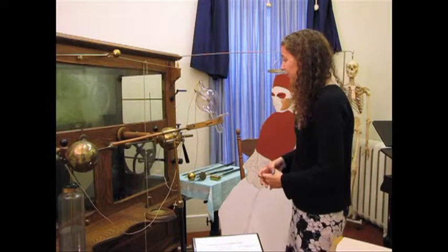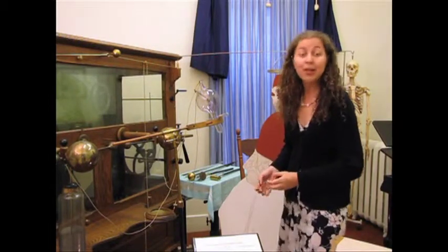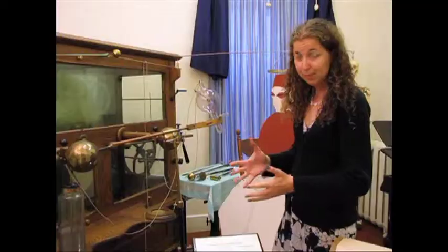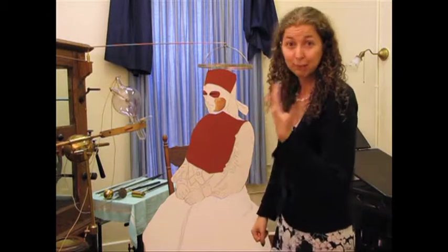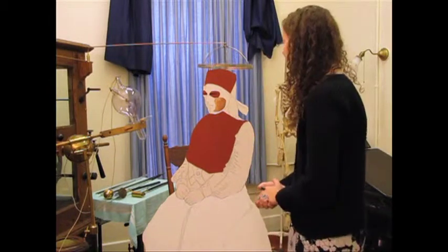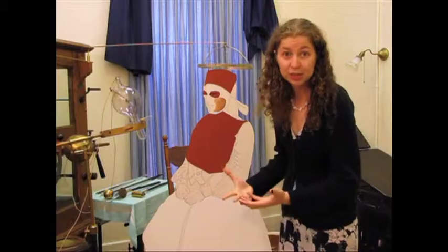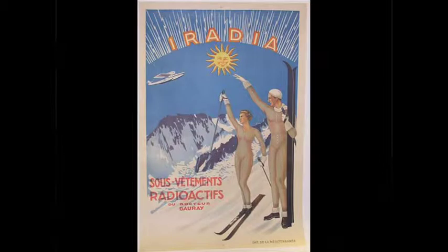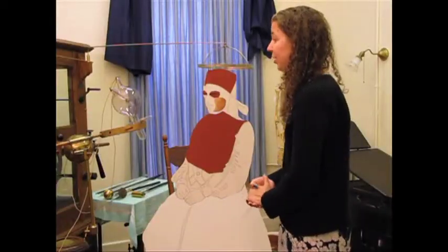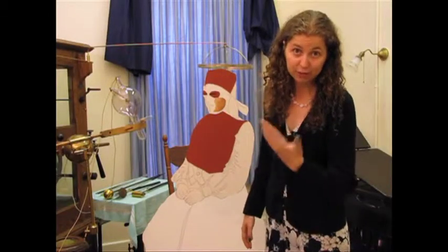But it wasn't just used for diagnostic imaging. It was also used for treatment. This young lady, she's having acne treated. And you can see, basically she would have come three times a week probably to get radiation to her face. People didn't understand how dangerous that was at the time. Nowadays we know that we have to cover up when we're having an x-ray done or any kind of radiation, because people use radiation today for cancer treatment.